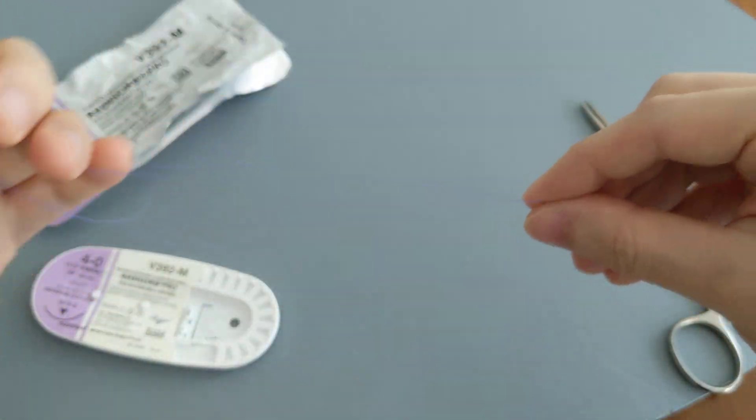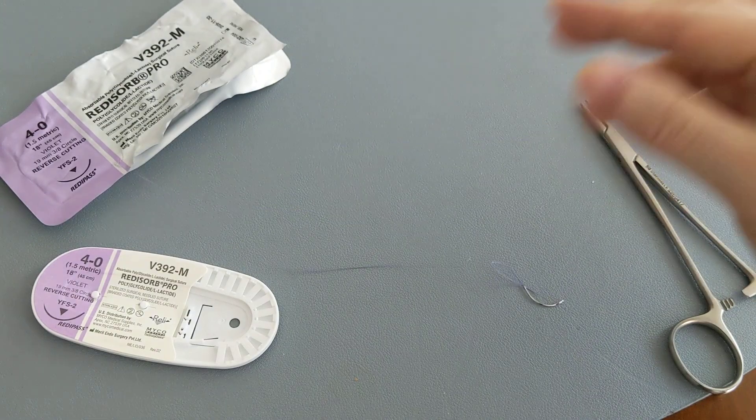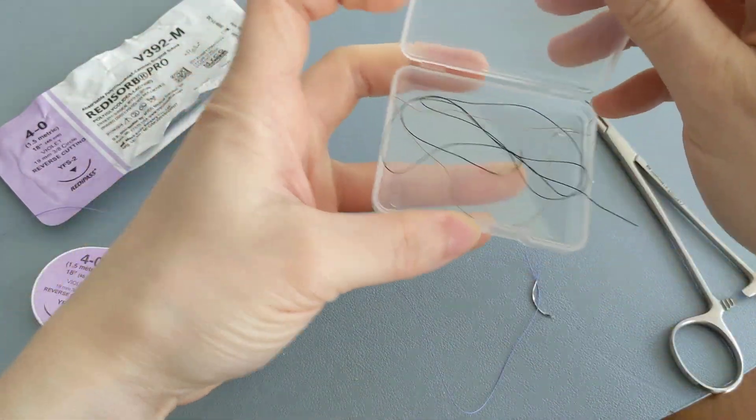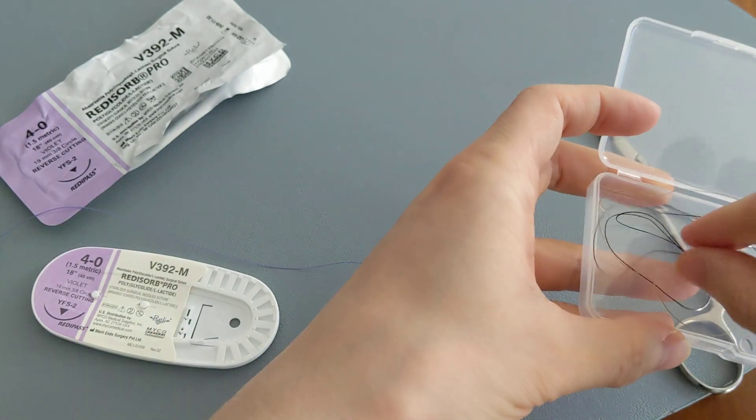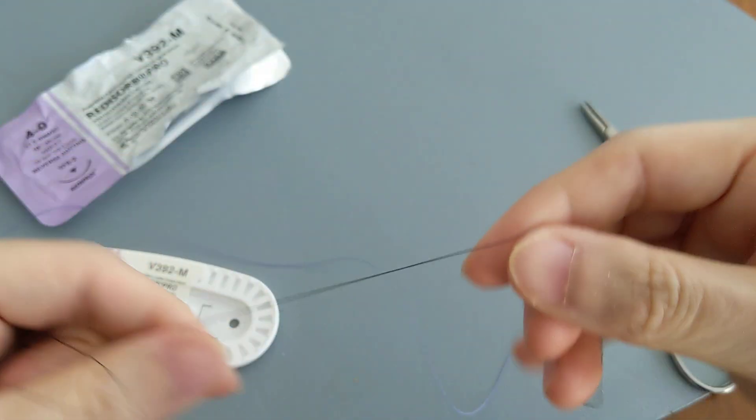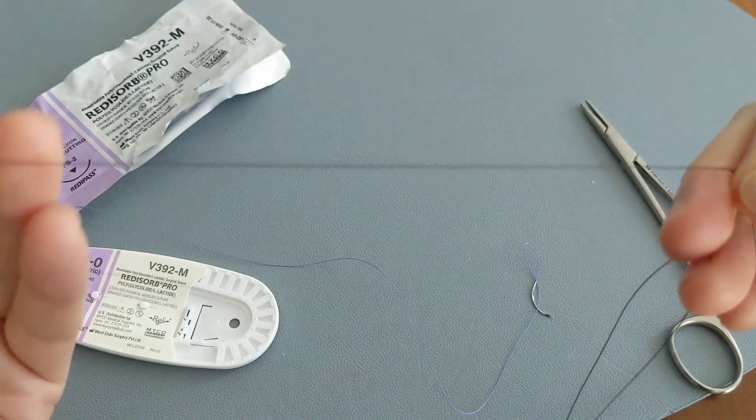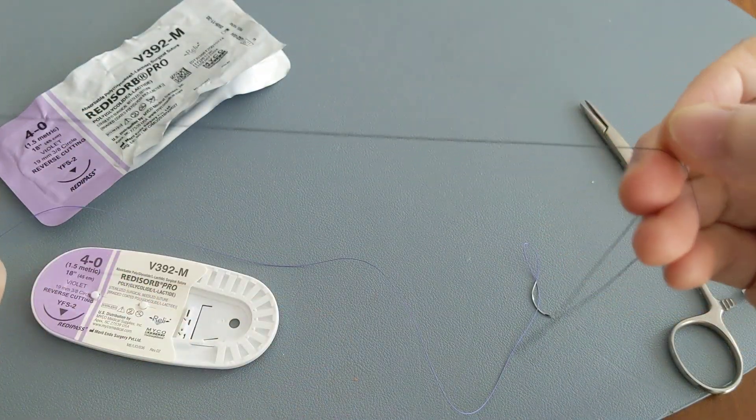Keeping these on hand. So here are some black ones. The black ones are actually made of silk and it is non-dissolvable.